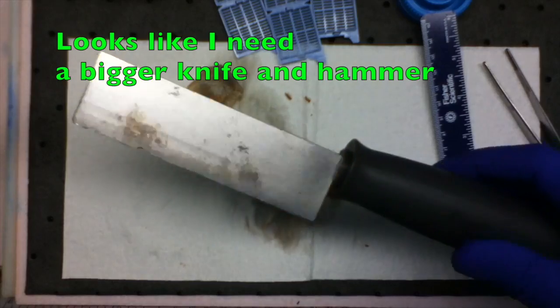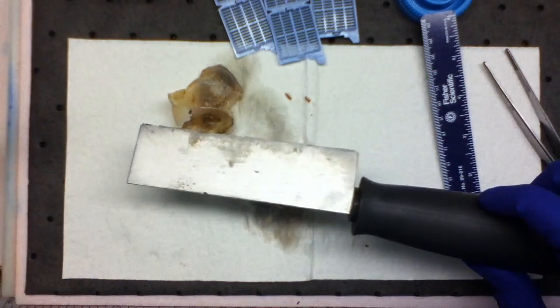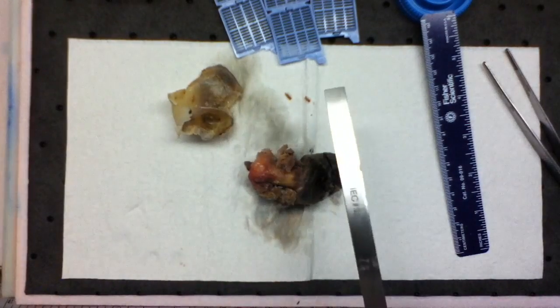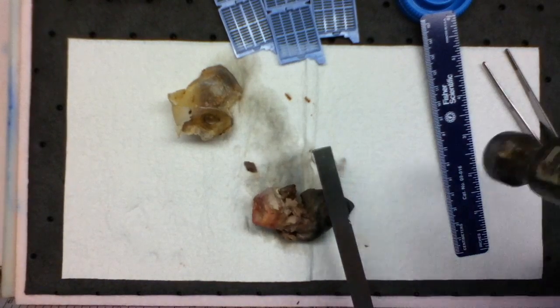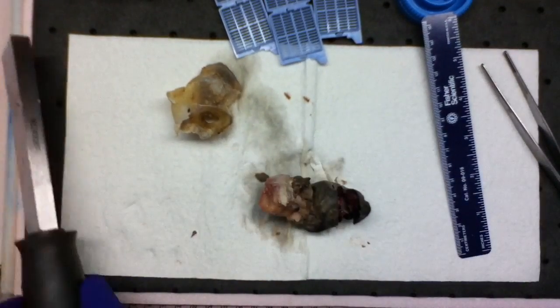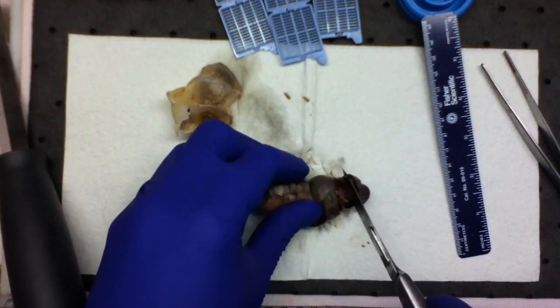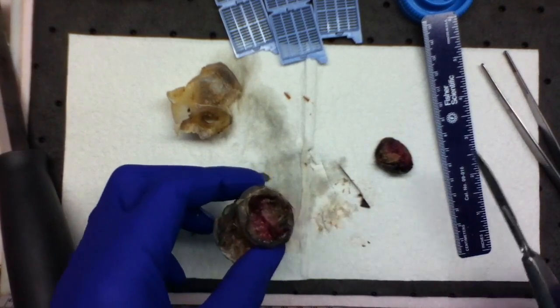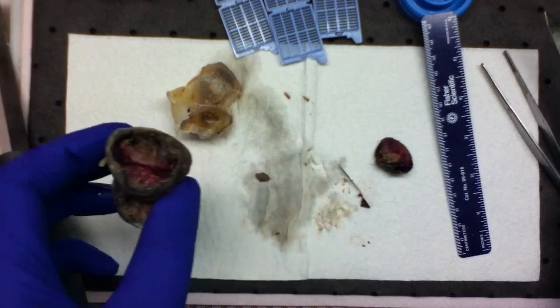And my diener made me this. This is an old microtome blade that he affixed to a handle. Sorry about the camera jiggle. Alright, so basically I like to scribe the cut surface, so I'll do that now.